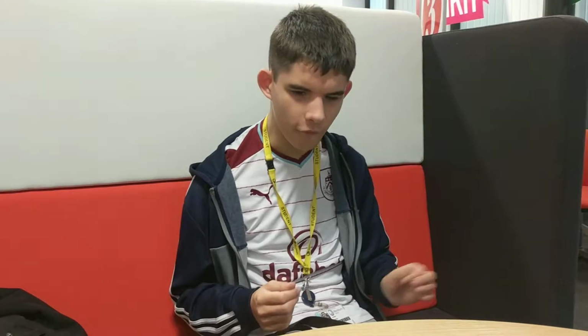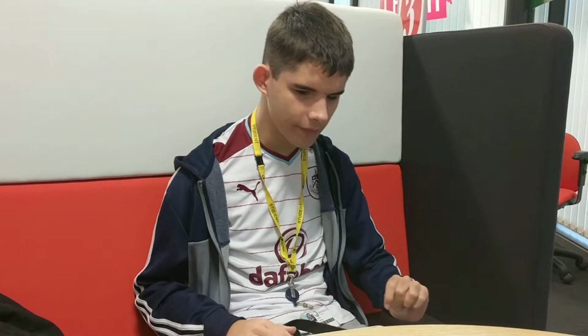At the moment, we're in the My Documents folder. So what I'm going to do is go to a different folder, and go into the Downloads folder. I've got so many MIDI files, I can't actually open these in the word processor. Yes, if you try and open a document that's not supported in the word processor, you'll get that message. But it looks like I don't have any other documents open at the moment, other than this one. So let's just work with this document right now.